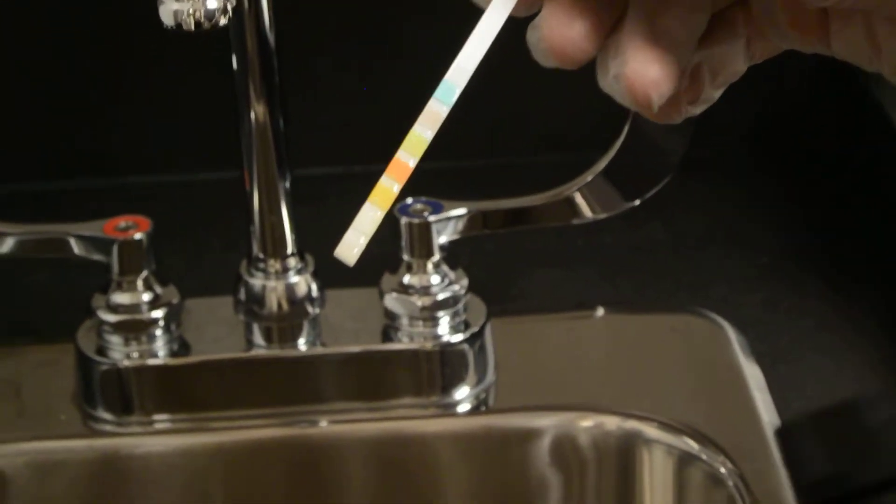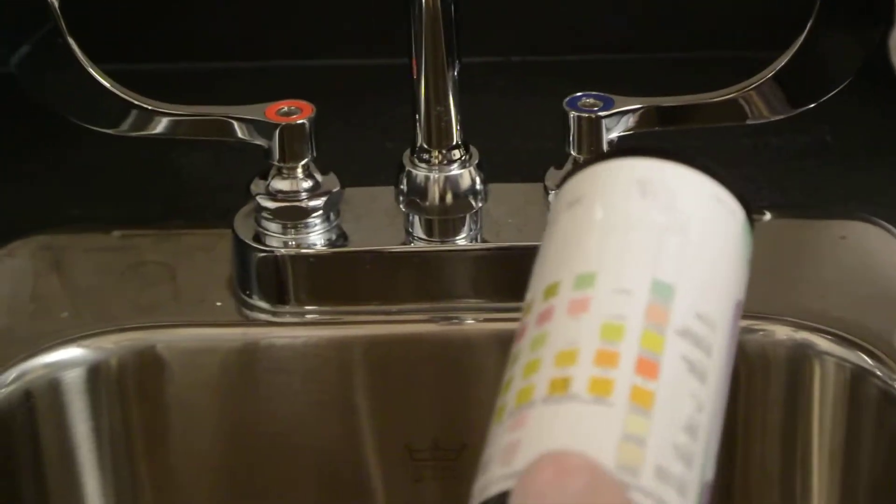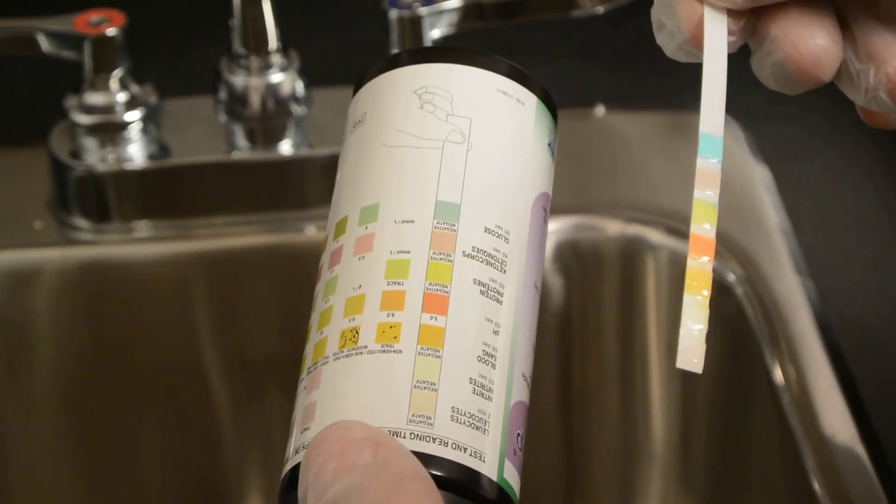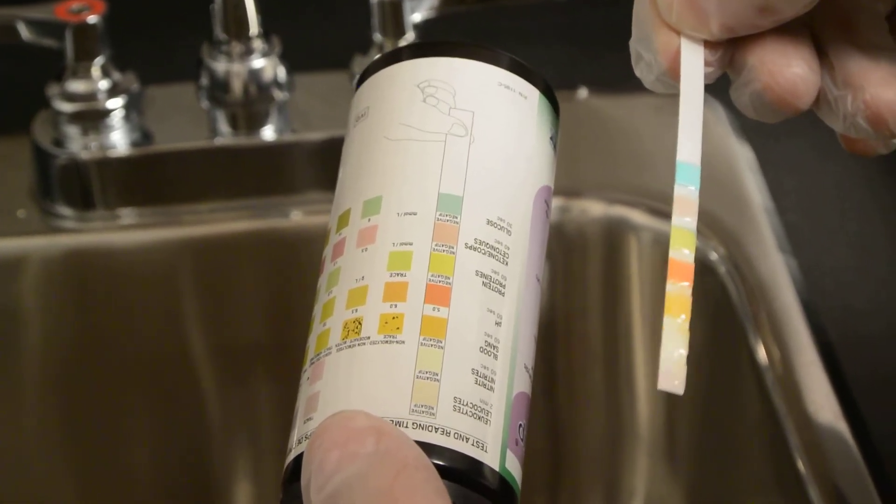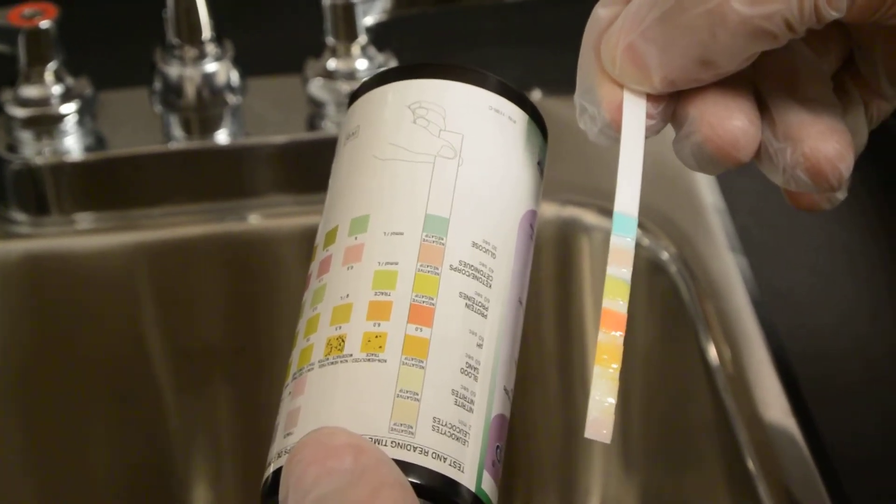As you see, there are different colors. Make sure that you hold it appropriately. There is a drawing of a finger showing which end to hold in the appropriate way.